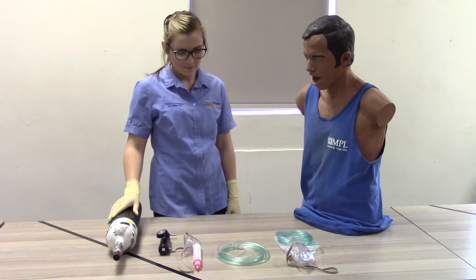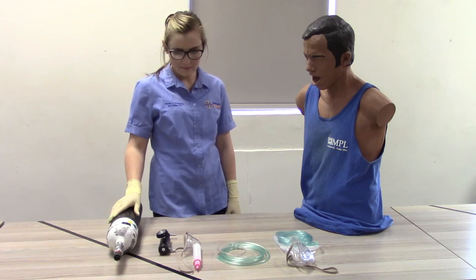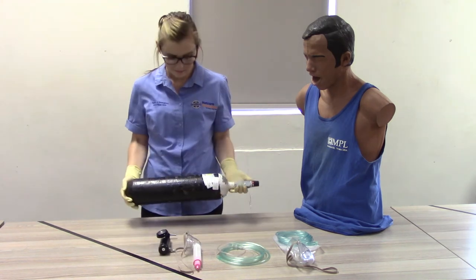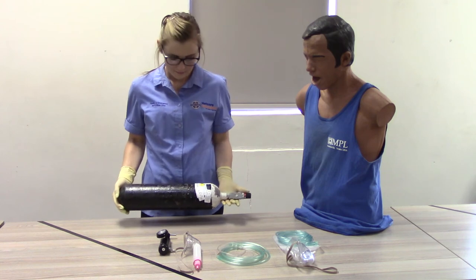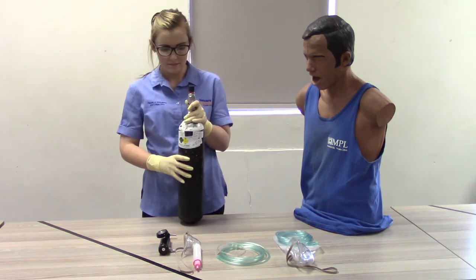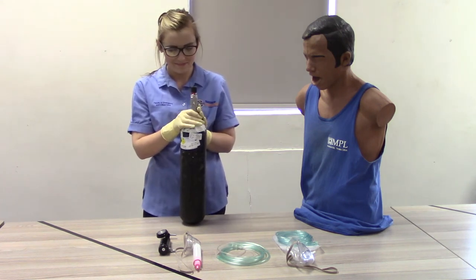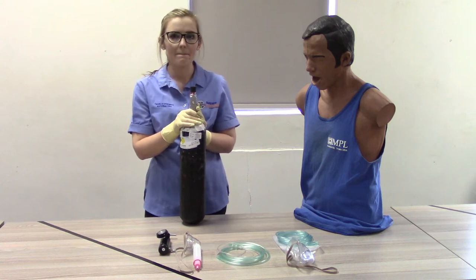Step 2: Preparation of the oxygen cylinder. Select an oxygen cylinder and ensure that the cylinder is not damaged. Handle the oxygen cylinder with care at all times. Slowly open the oxygen cylinder's main valve until the rush of oxygen is heard, then quickly close the main valve, ensuring that the cylinder faces away from anybody.